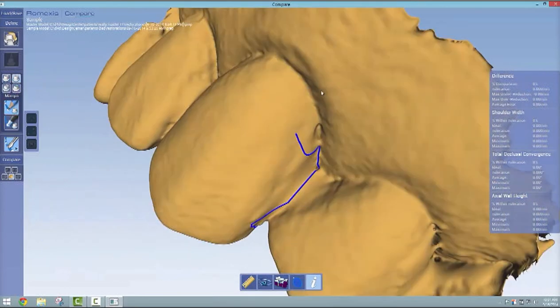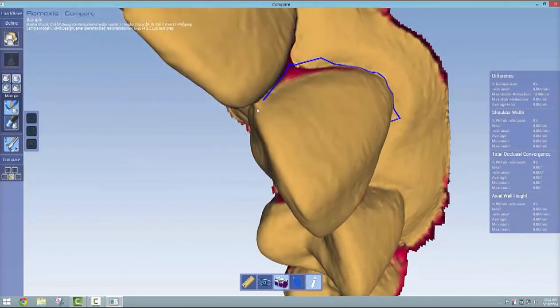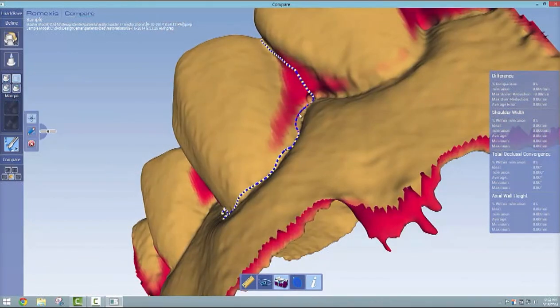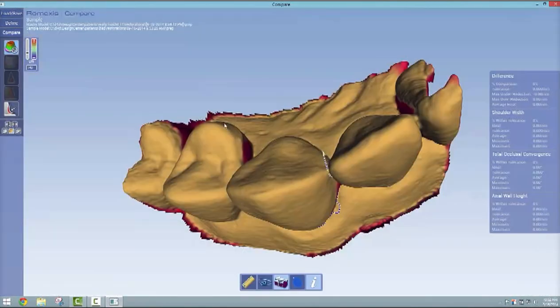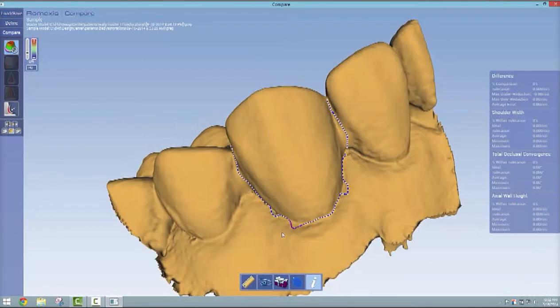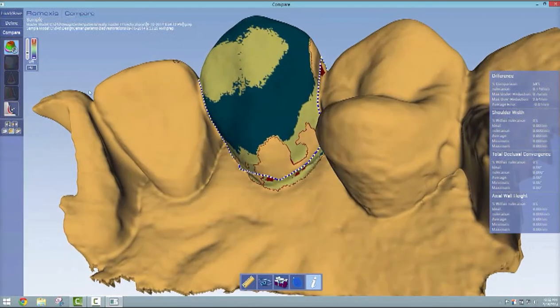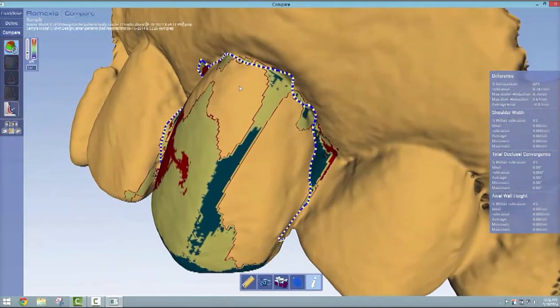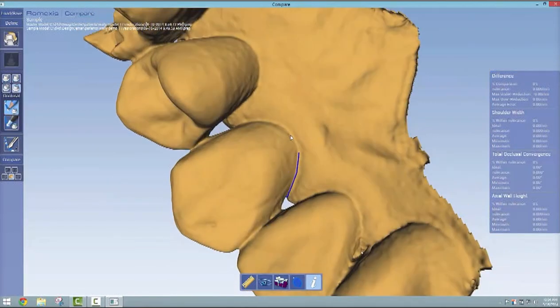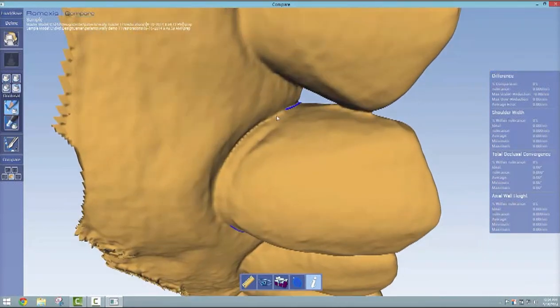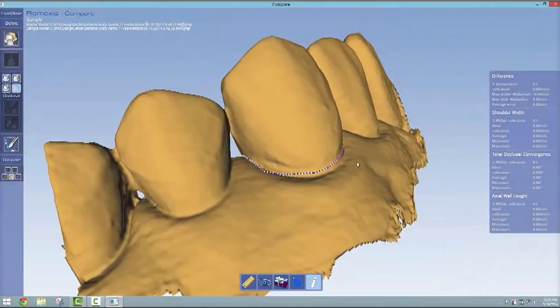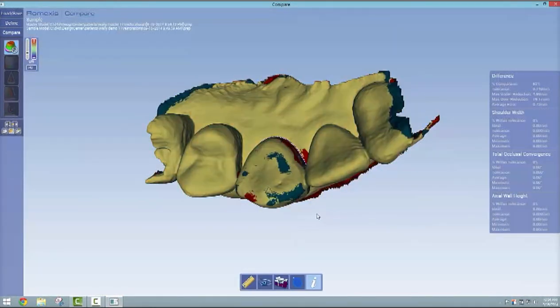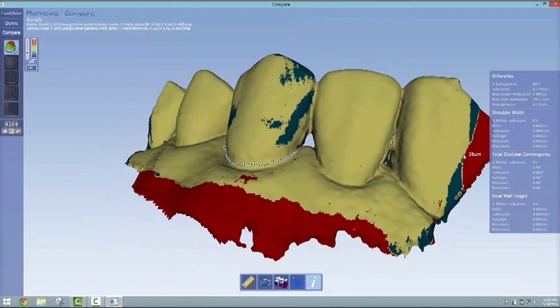There's some things you need to know when marking your margin. Highlight the low data down there. I just clicked that and it turned pink where you have bad data. Don't put your margins on pink data because you'll get weird stuff when you do your difference map. What happens is those margins are falling off into infinity somewhere because there's really no data there. Likewise, if you have a really good scan like here and you want to go underneath your embrasures, which you would think would be okay, don't do that because it's going to analyze the whole model.